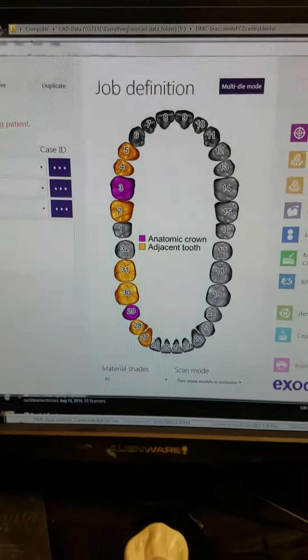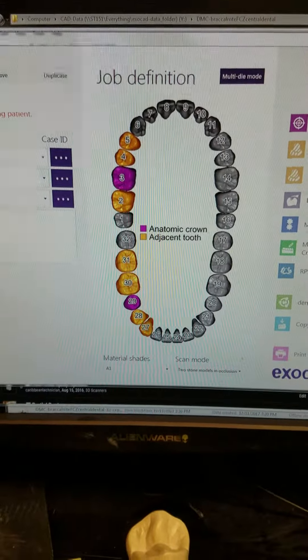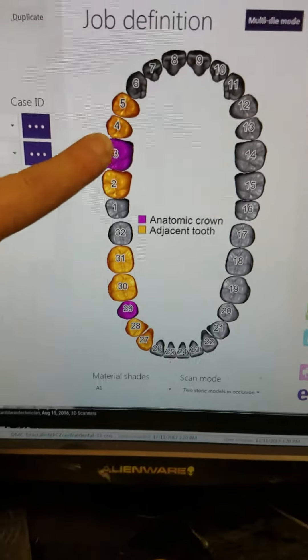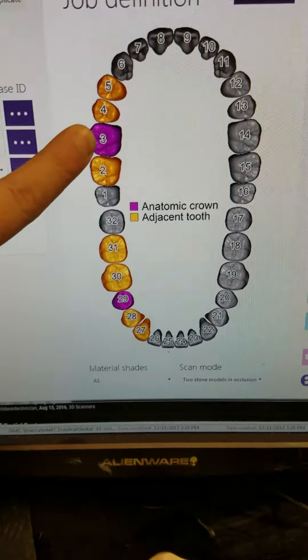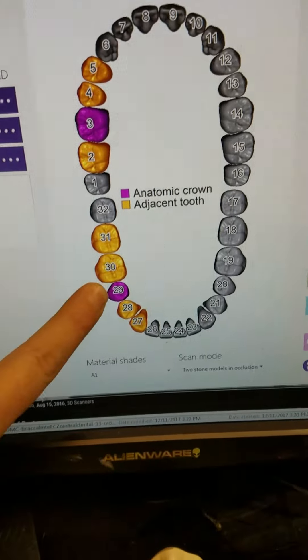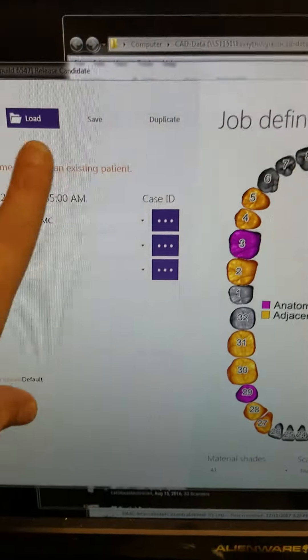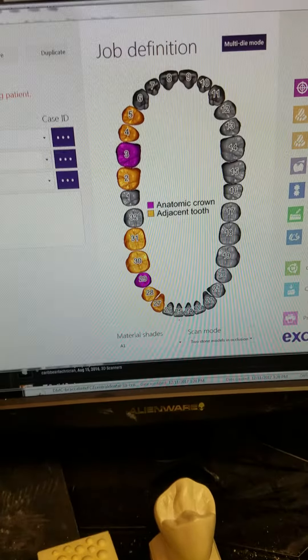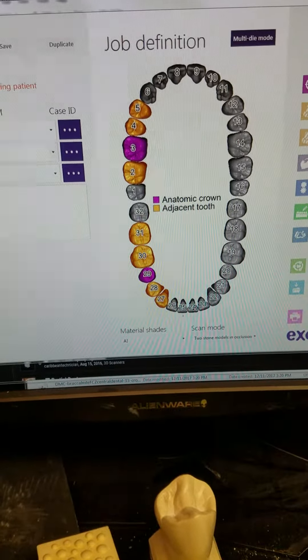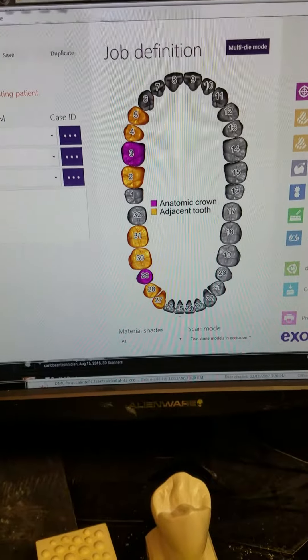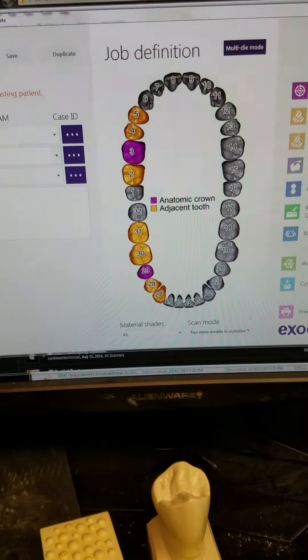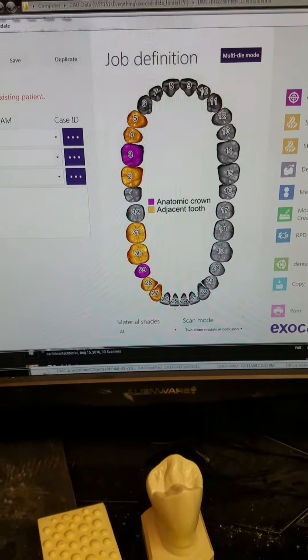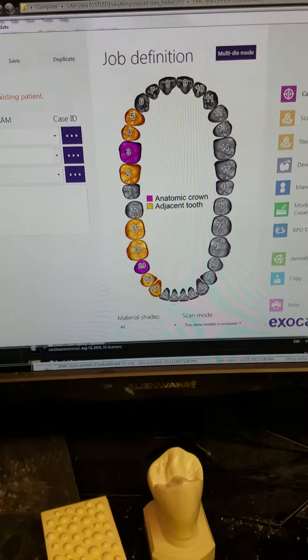Hello, this is Scott for the Shining 3D software. If we have one crown that we want to design and another crown we want to design, we save it and go to scan. The scanning software never asks for the bite scan, also called the vestibular scan. Then when we go to CAD design, the models are in the wrong place.